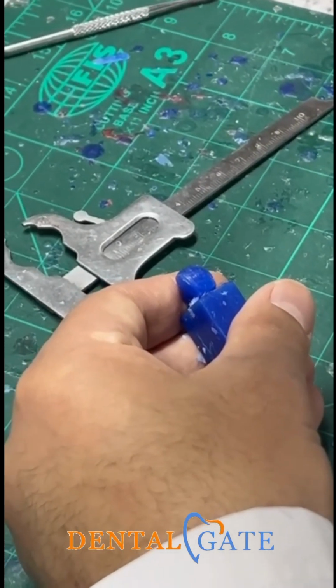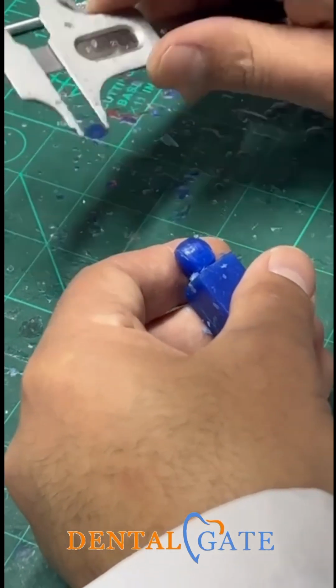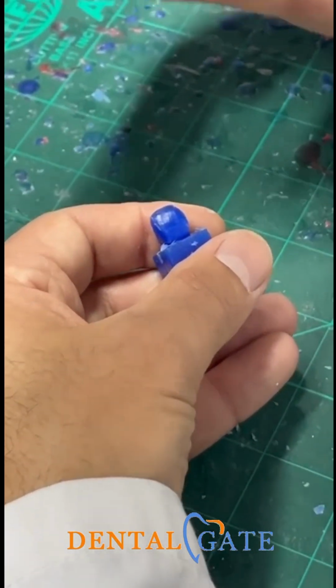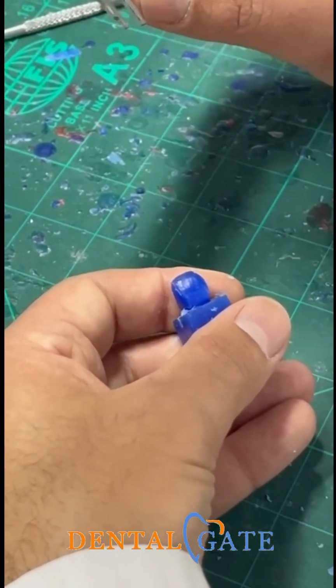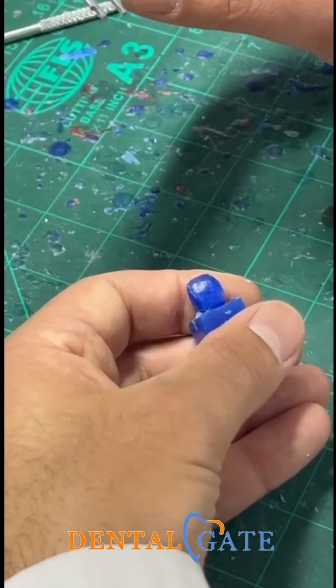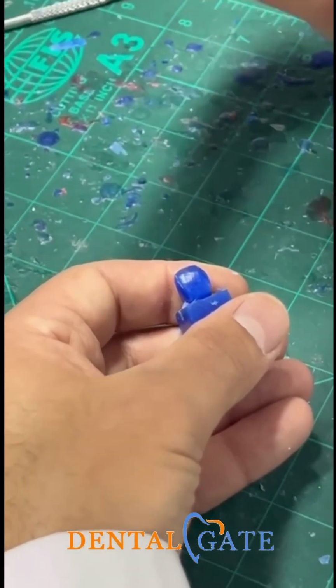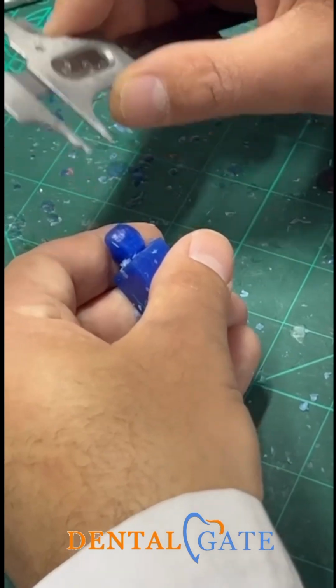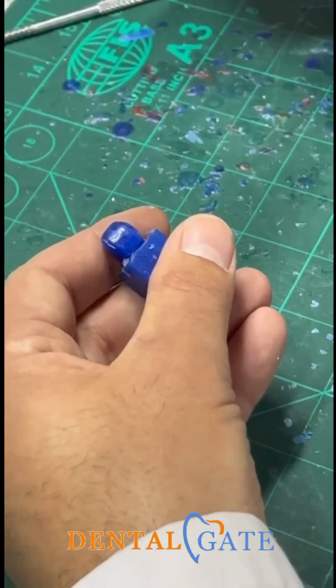Okay? So I will make a double check for the contact area if I had excess of wax, because our agreement is to put 0.5 for carving to avoid mistakes, because we are beginners with the practice. Okay? So this is 0.5. You can leave it for roundation. There is no blame for that.